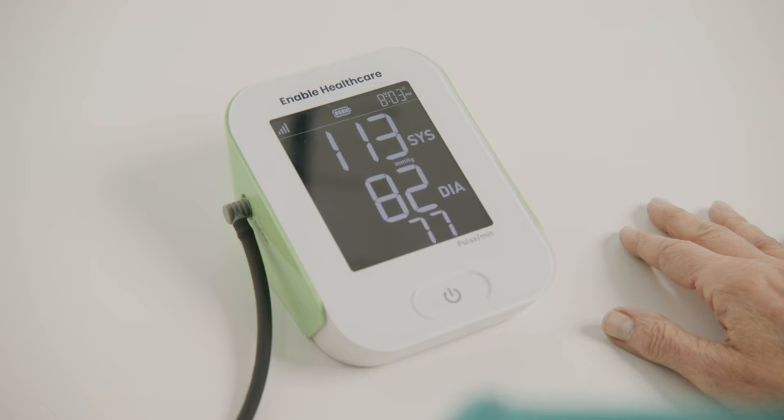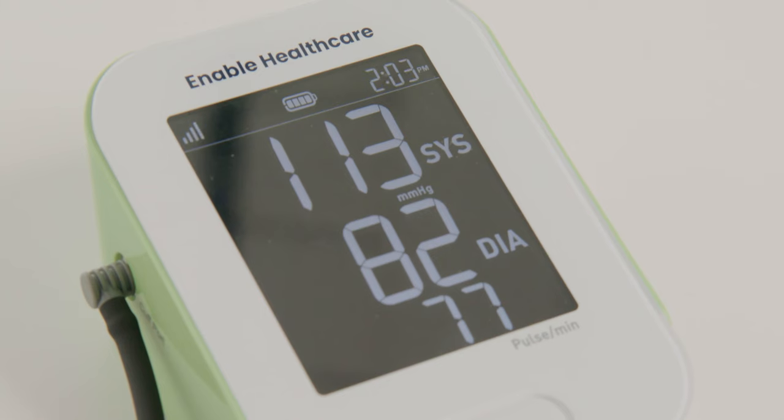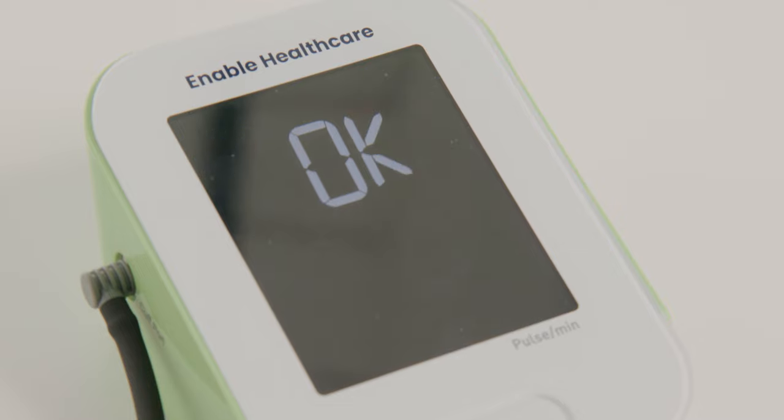Your reading will be displayed on the screen once completed and will automatically be transmitted to your provider. Once your readings are successfully transmitted to your doctor, the device will display OK.